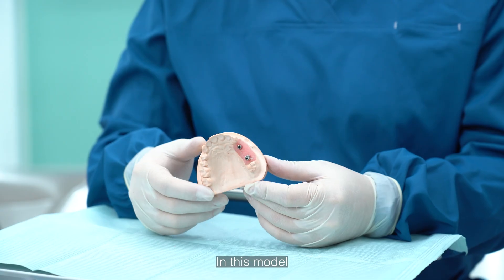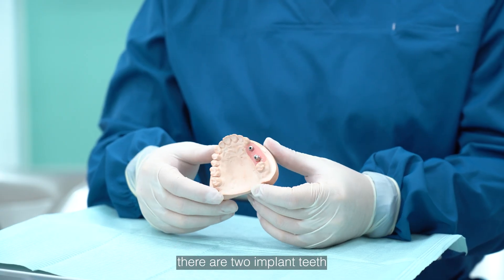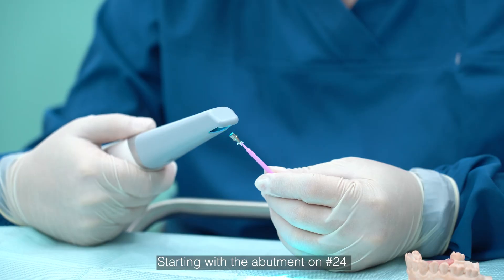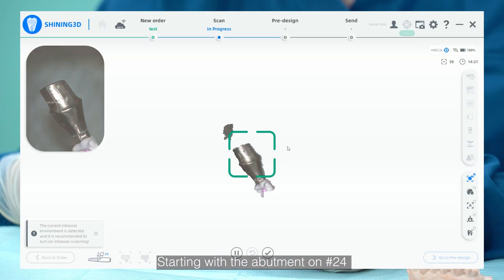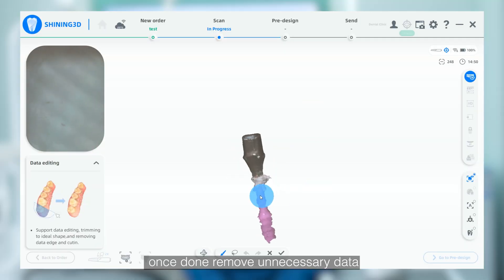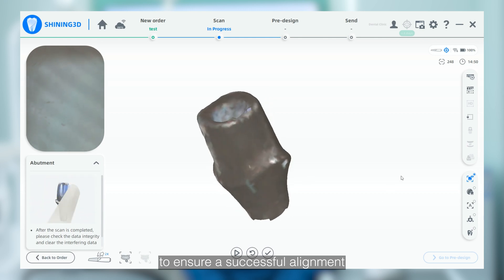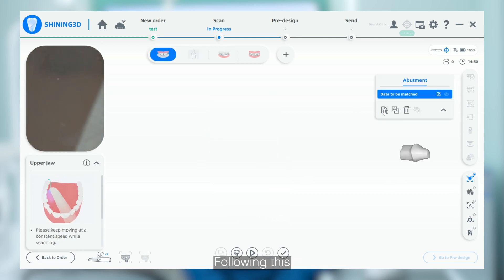In this model, there are two implant teeth. Let's scan them one by one, starting with the abutment on number 24. Once done, remove unnecessary data to ensure a successful alignment in the later steps.